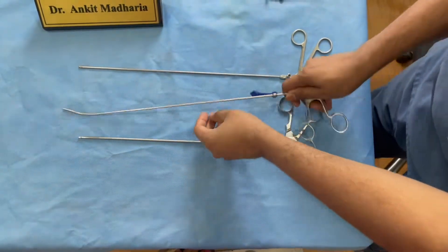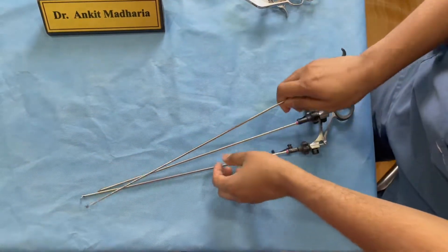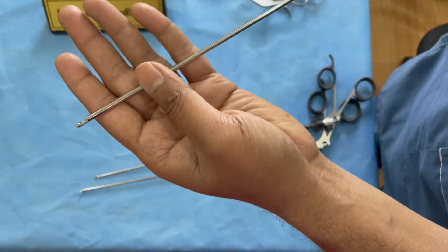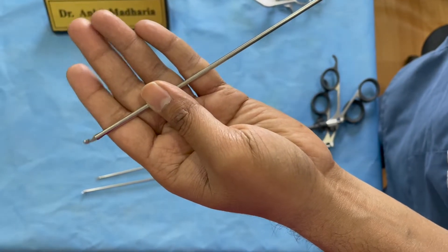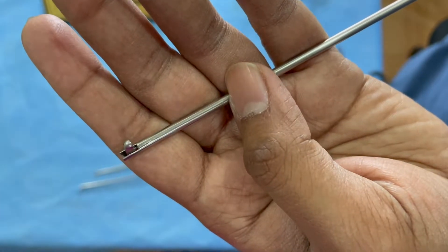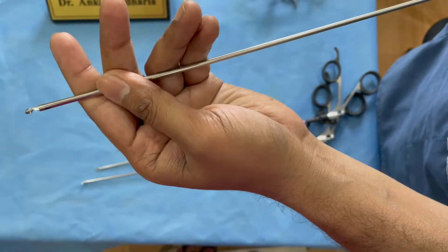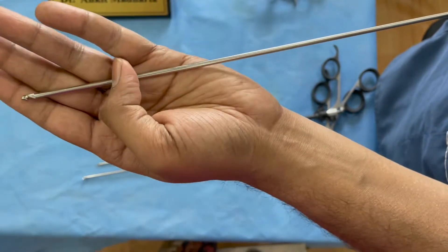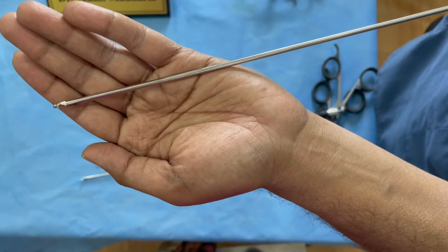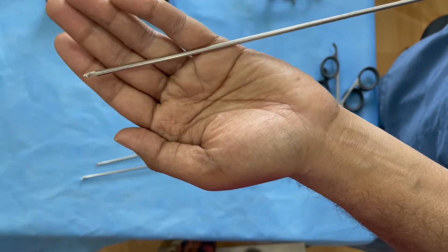The next thing you need is very good curettes. There are basically three types: the first is a forward-bending articulated curette with a cup that scoops forward. The articulation allows it to take out end plates or hard collagenized annulus — you flex it and pull it out like this.